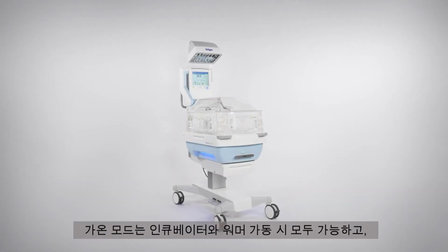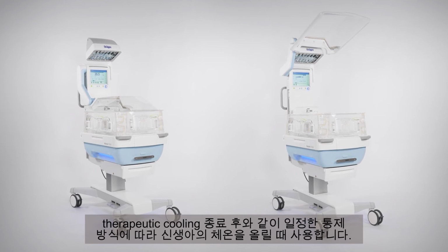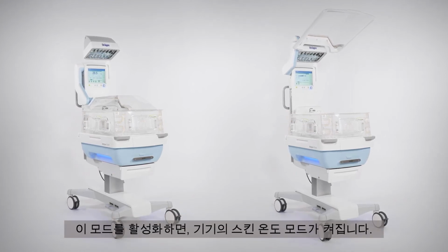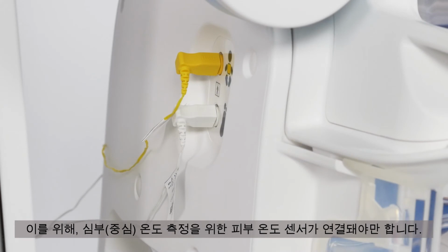Warm-up mode is possible in both incubator and radiant warmer operation and is used to warm up the baby in a controlled and defined way. For example, after the therapeutic cooling ends. When you activate this mode, the device will switch to skin temperature mode. For this to happen, the skin temperature sensor for measuring the central skin temperature must be connected.